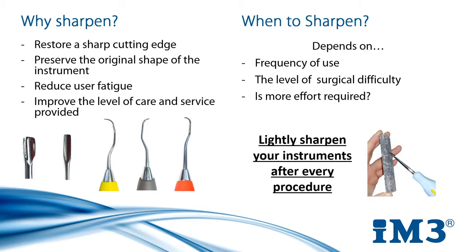For those of you beginning, a quick test to see how sharp your instruments are is using them as you would on a tooth but on a plastic rod. A toothbrush handle works very well for this. You should feel the blade bite as you move it up and down. A blunt blade will effortlessly slide up and down the plastic in comparison.